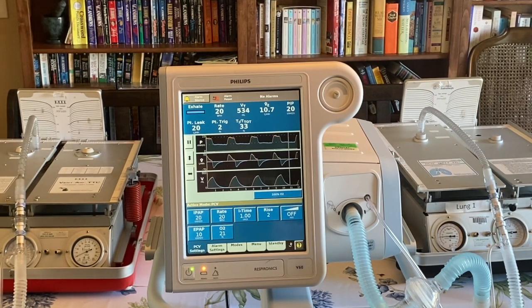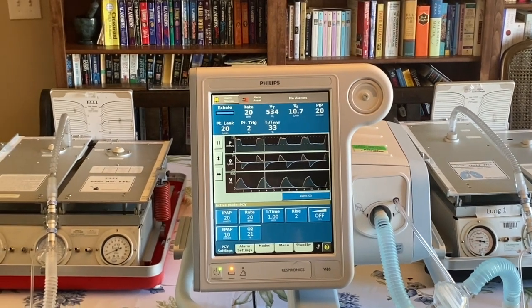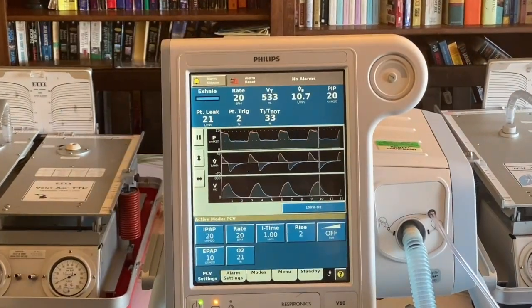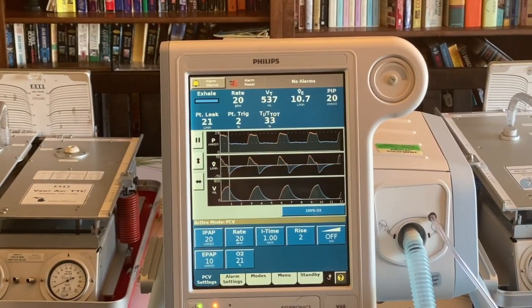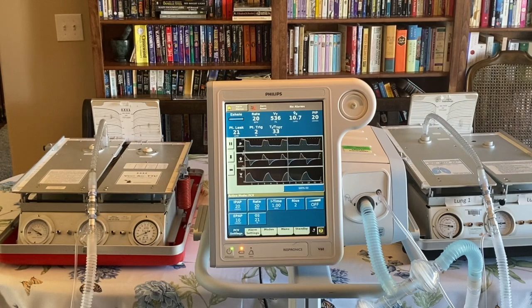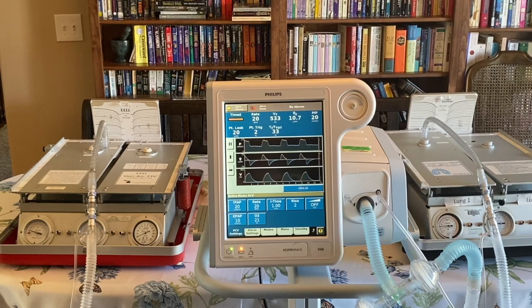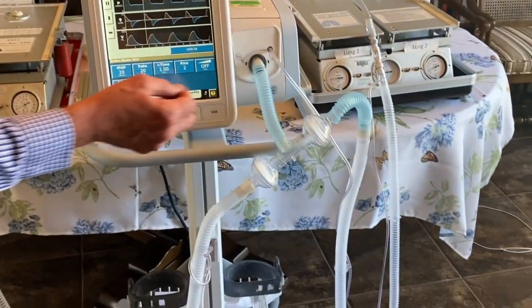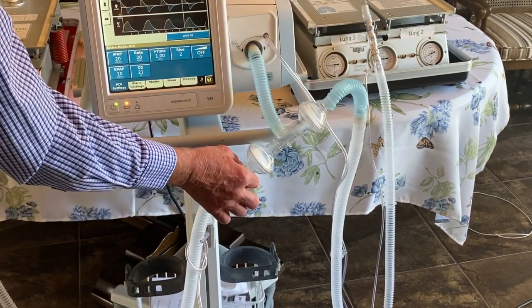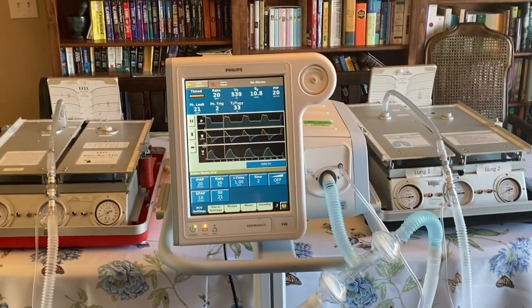There's no way for us to tell what the tidal volume is in each lung individually. We have to use our clinical skills to assess the patient. As clinicians, we need to monitor the patient continually and watch how the patients are changing over time. If our combined tidal volumes between two, three, or four patients had been 800 or 1200 and suddenly drops, we know there has been a decrease in compliance or an increase in resistance, and we have to evaluate the patients to determine what the problem is. If we wanted to add more patients to this, we could put another T on here and connect two other circuits, and could conceivably ventilate two, three, or four patients at one time.